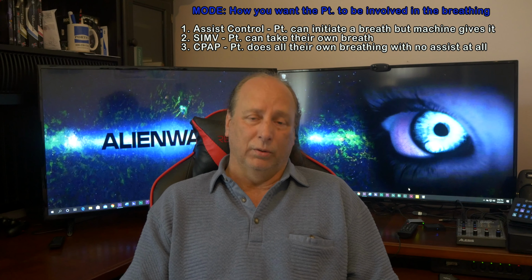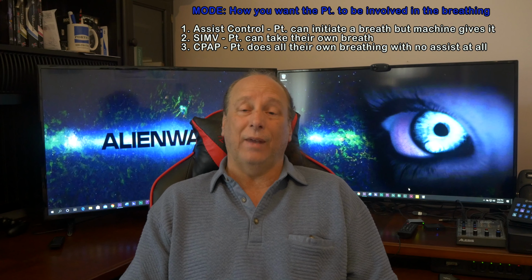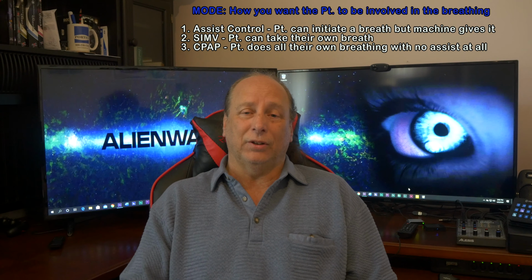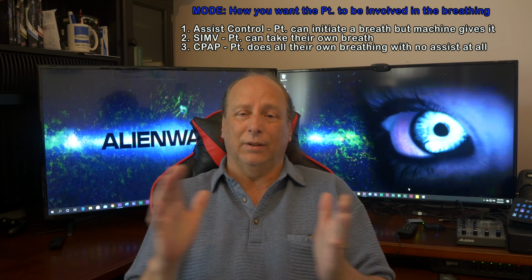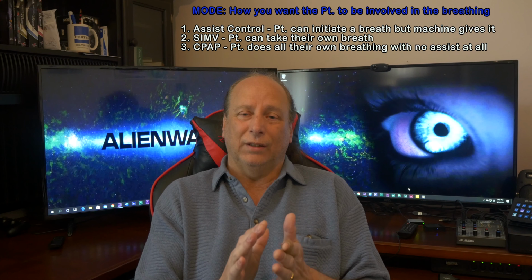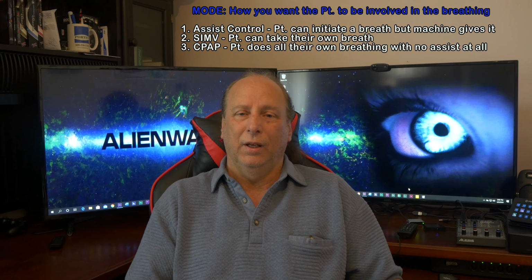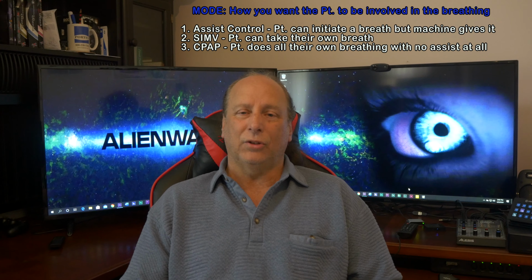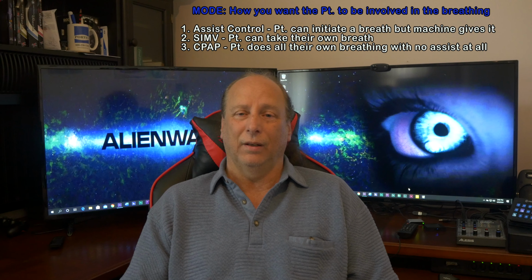One of the other common modes, how the patient should be involved in the breathing here, is CPAP mode. And people say, oh, I thought that was a CPAP machine. Well, a CPAP machine only does this. On the ventilator, you switch to CPAP mode, and it acts like a CPAP machine. You set a positive end expiratory pressure, so when the patient exhales right at the end, it doesn't let the alveoli close all the way. If you set 10 centimeters of CPAP, then there's going to be an end expiratory pressure of 10 to keep those alveoli open. In this mode, the patient does all the breathing. It's just they have that little extra pressure to keep the alveoli open.